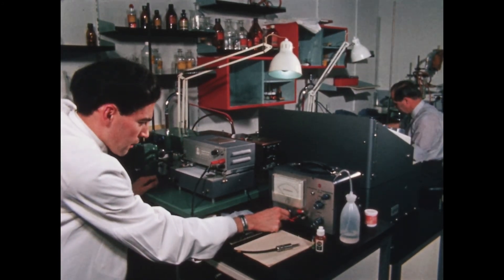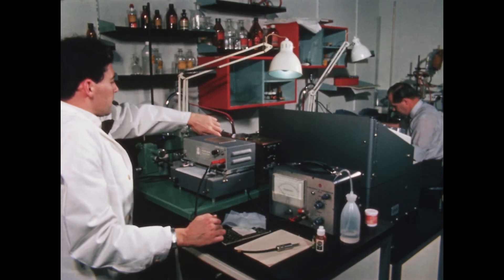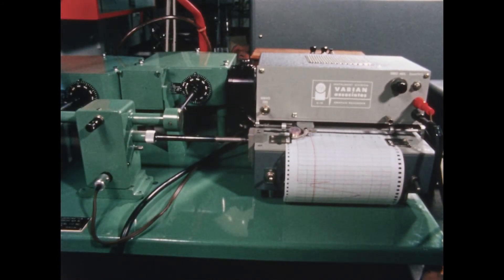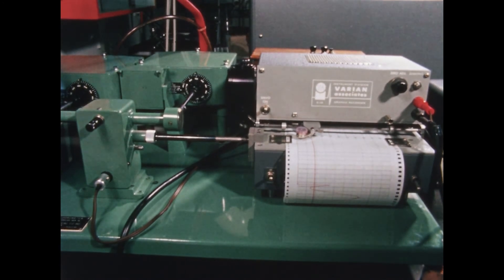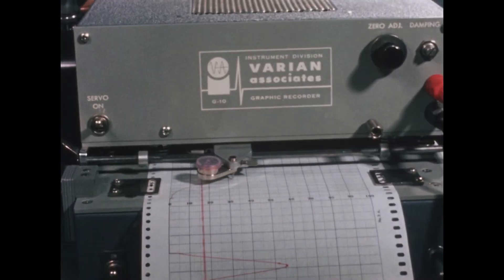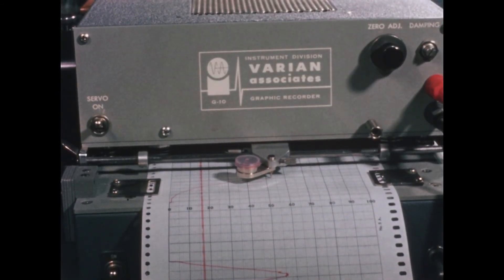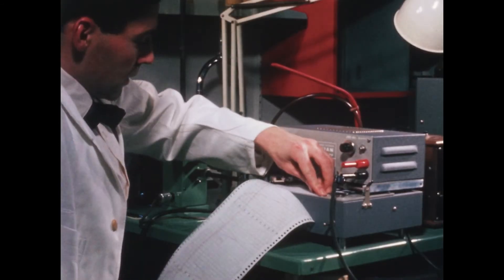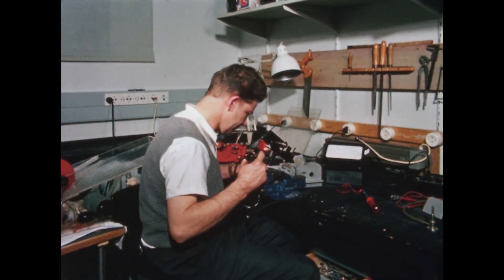It is of the utmost importance to the laboratory to have a workshop for doing repairs and constructing new apparatus. This apparatus was constructed in our workshop for preparing our disposable tubes with anticoagulants. Aqueous solutions of the anticoagulants are added in measured amounts and then dried. At the same time, a colored ring is painted on the tubes to distinguish between the various types.